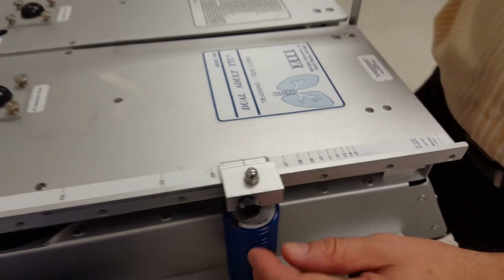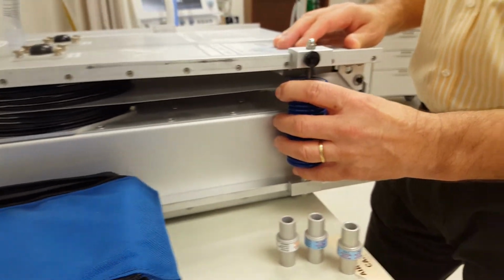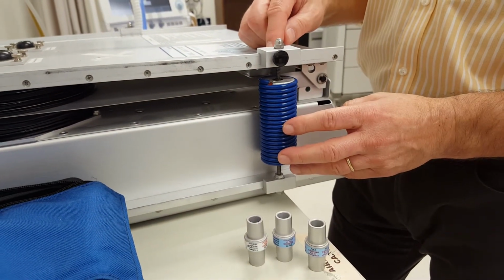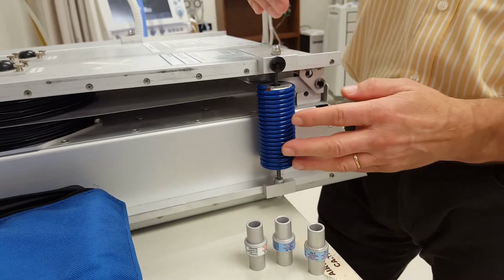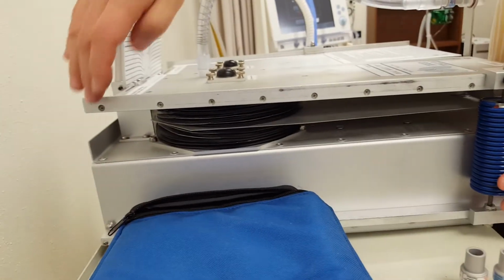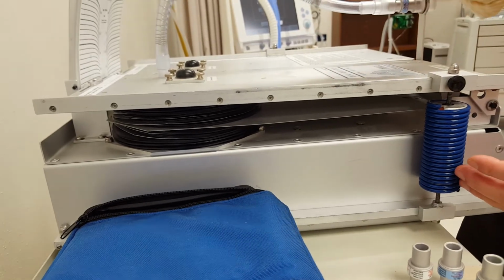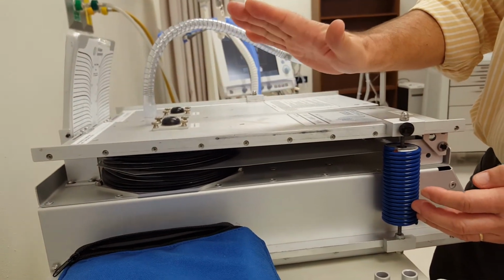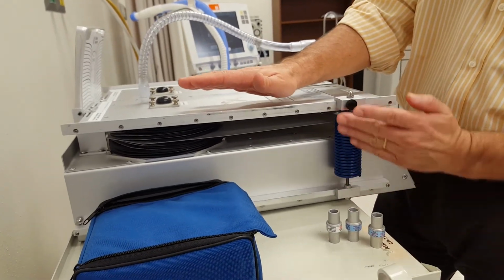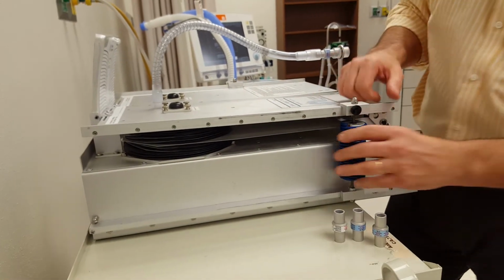Well, how do we adjust it? If we look on the side here is a spring. If we come way back here to the very compliant, make sure it's straight up and down. You can see I now have it set at 0.15, so this is very compliant. Notice when the lung moves, it's going to come up from this end here, and you can see there's no spring resistance way down here. It's at this end, which makes it very easy to expand the lung. So if we're in volume ventilation, our pressures will be very low when we have the spring adjusted back to this side. Well, what if we make it down here?